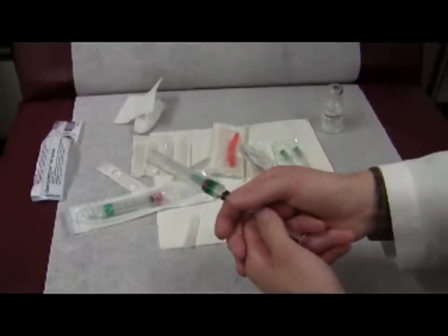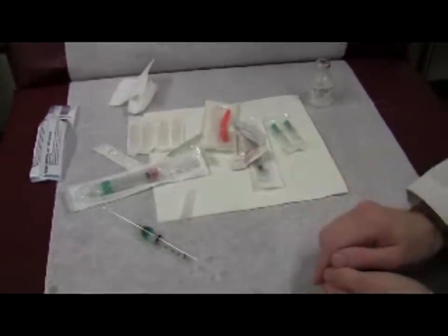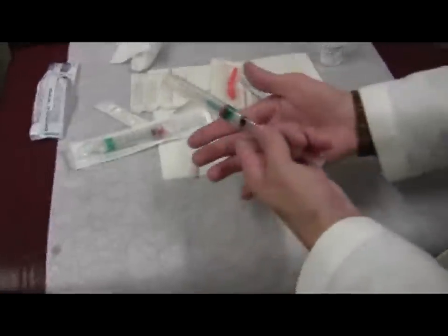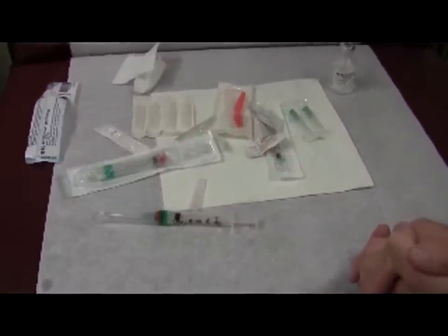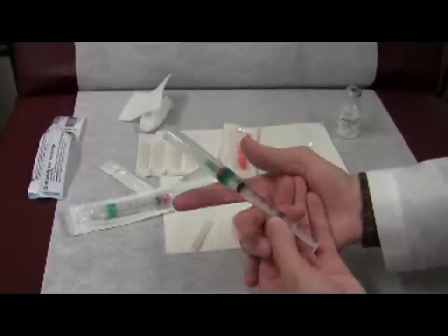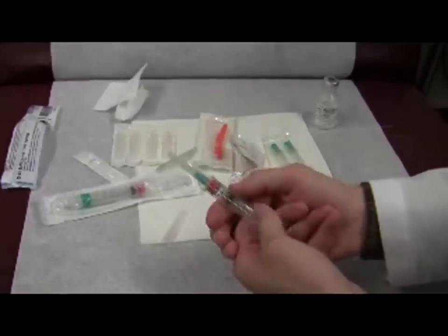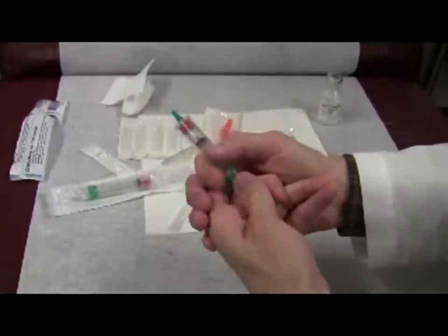Now we'll move on to deactivating the syringe safety mechanism. Sometimes you've injected some medicine, put the thing down, and you need to inject more medicine — or if you don't use all the medicine, you may want to use it later. When deactivating the safety mechanism, hold the base of the syringe in your left hand, place your right palm over the dorsal left fingers, grab the base of the safety barrel with your right thumb and index and flex them, pulling the barrel downward, thereby exposing the needle.